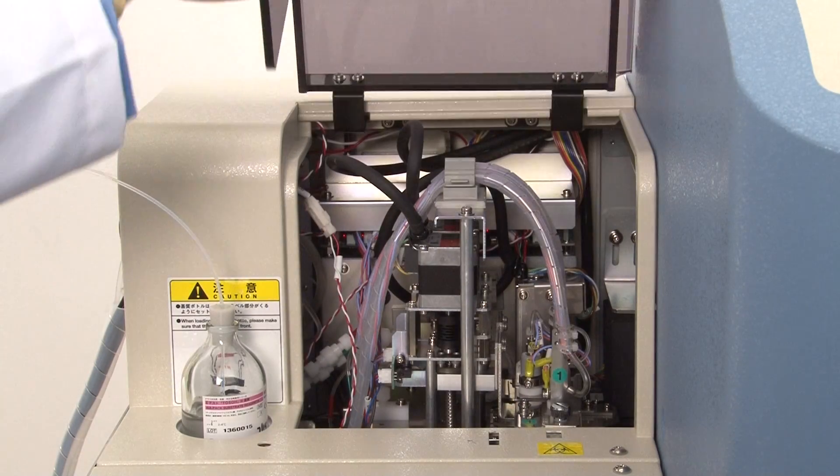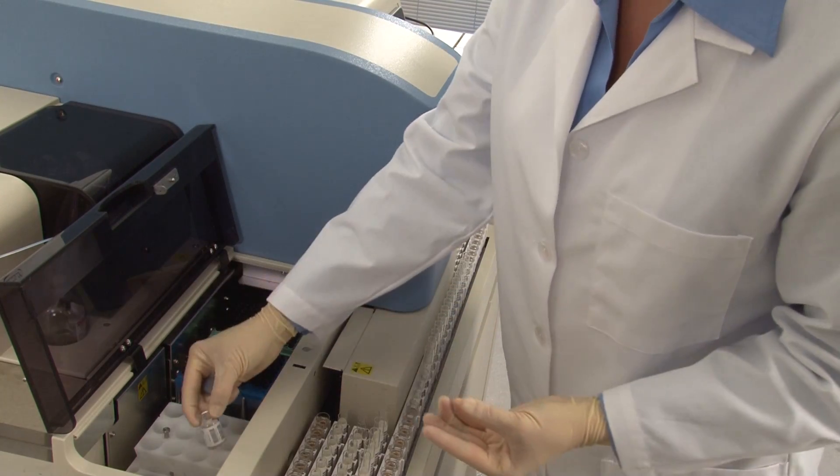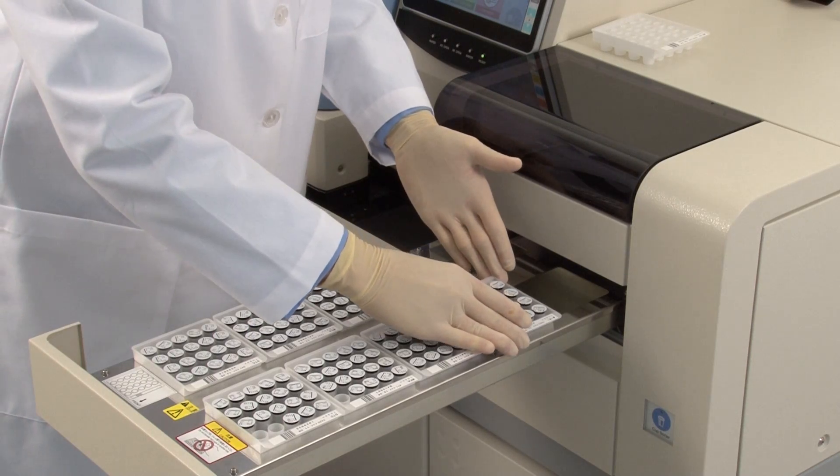Dilutions and pre-treatments are performed on board automatically. Inventory can be replenished as needed without interference to existing sample processing.